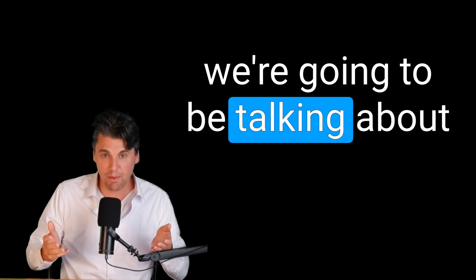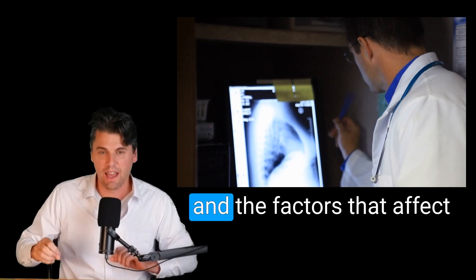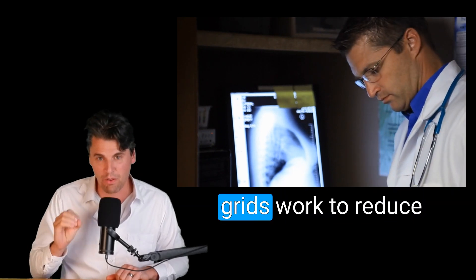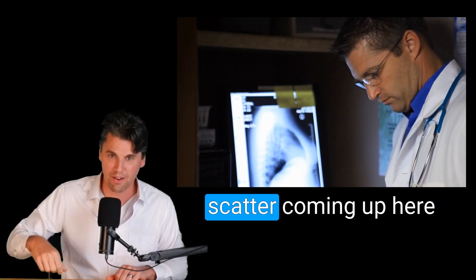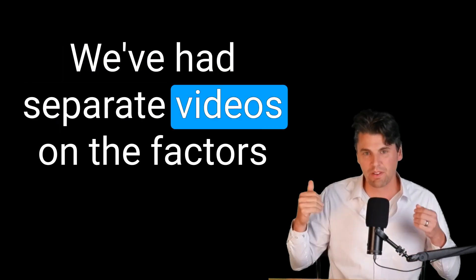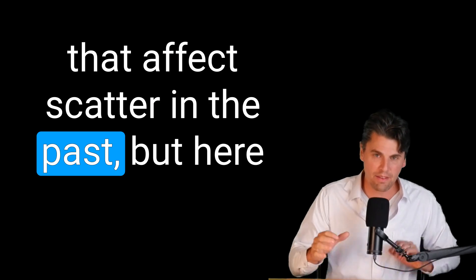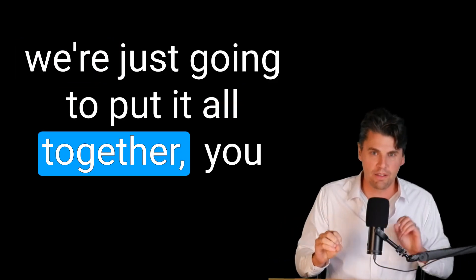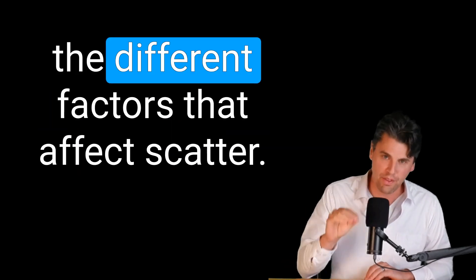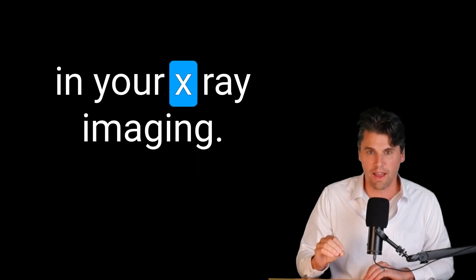Today we're going to be talking about scatter in x-ray imaging and the factors that affect scatter, as well as how grids work to reduce scatter, here at How Radiology Works. We've had separate videos on the factors that affect scatter in the past, but here we're just going to put it all together so you can get all the information in one spot.